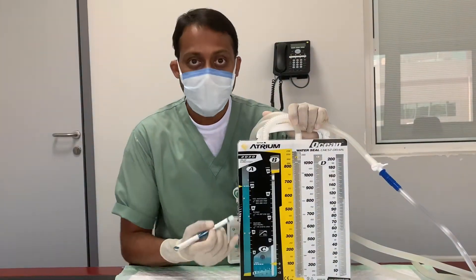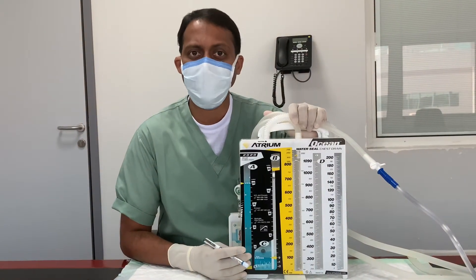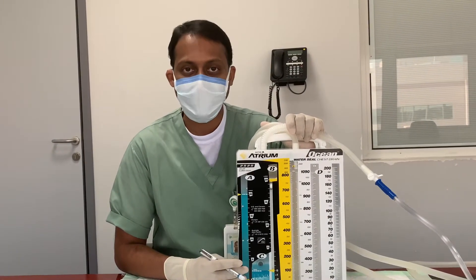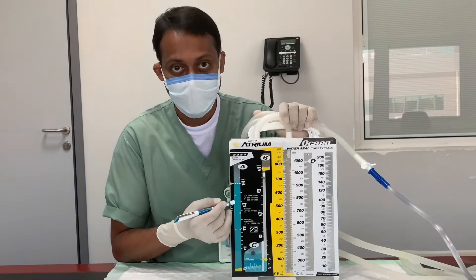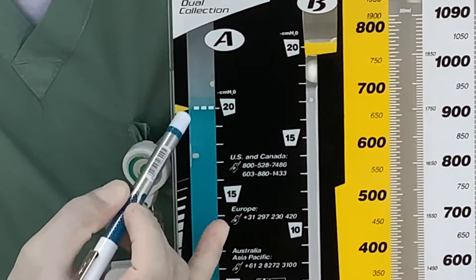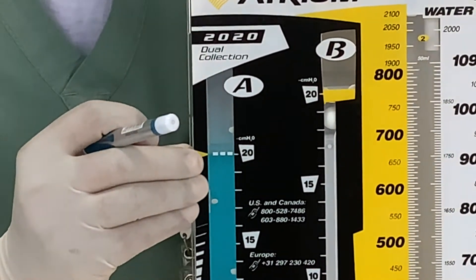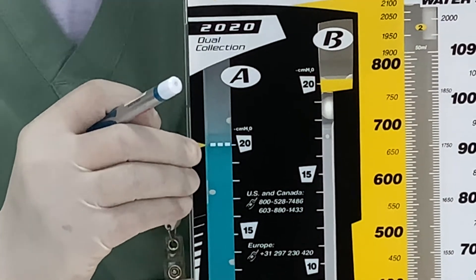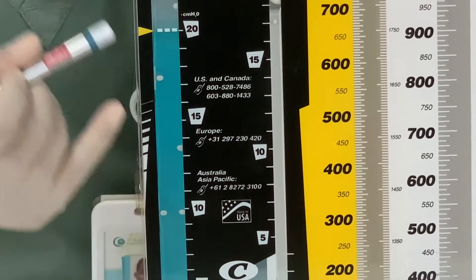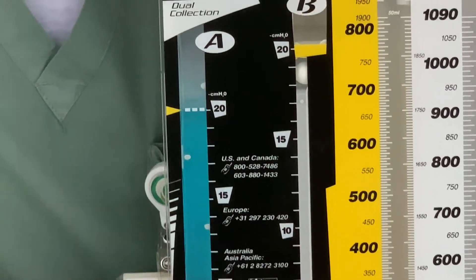From the steady bubbling, how do we know the suction pressure being applied? The suction pressure depends on the water level in the suction control chamber. If the water level is at 20, the suction pressure applied is minus 20 centimeters of water — irrespective of the wall suction pressure. If the water level is at 15 and there is steady bubbling, the suction applied is minus 15 centimeters of water.